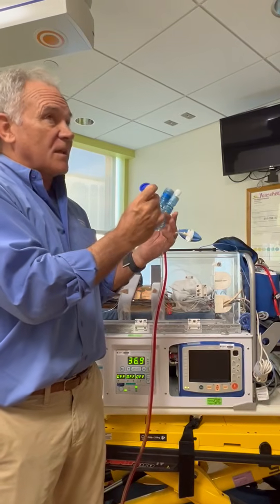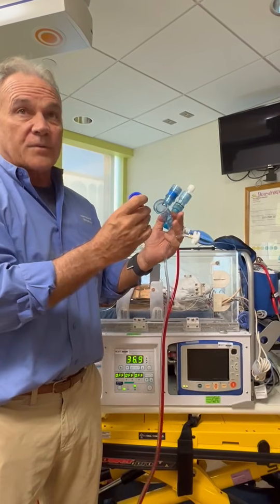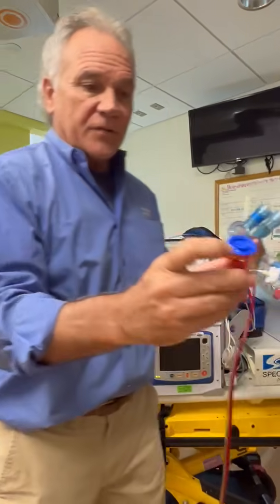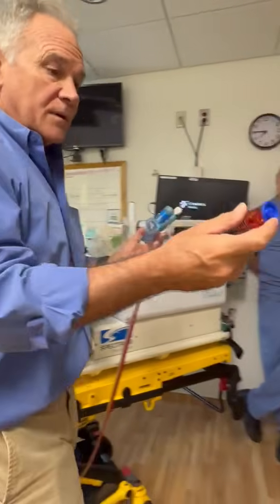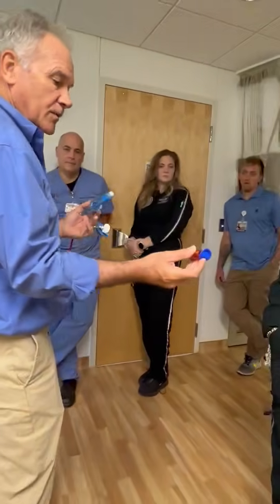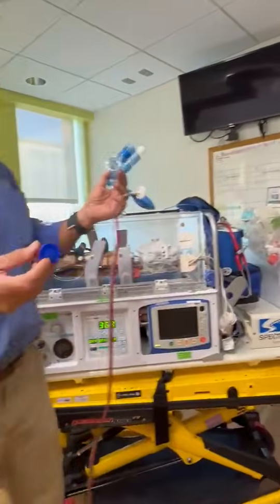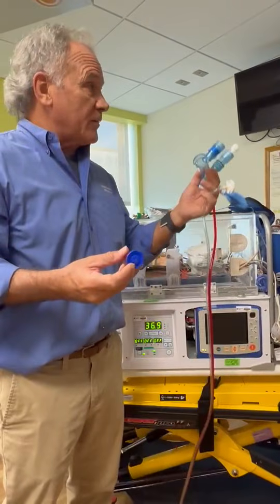But it's different. This is classified as a flow interrupter. Okay. So the gist of it is, I don't know if you can see, it's got this little mini diaphragm here, and it's got a spring. See that little spring right here? It's got that little donut gasket. And the flow interrupter was actually the first high frequency ventilator developed out in California.